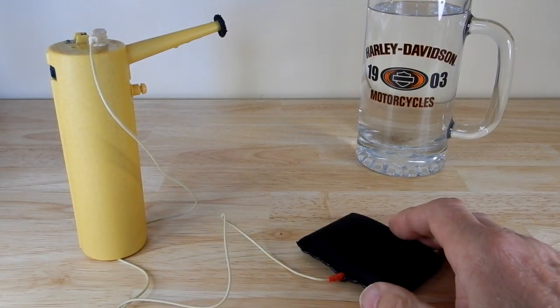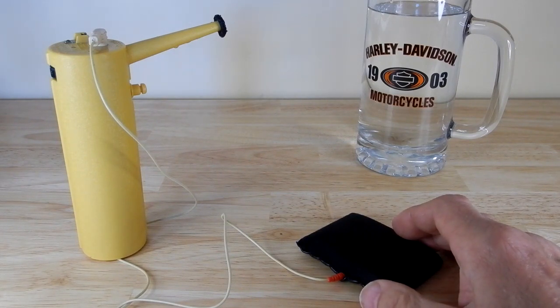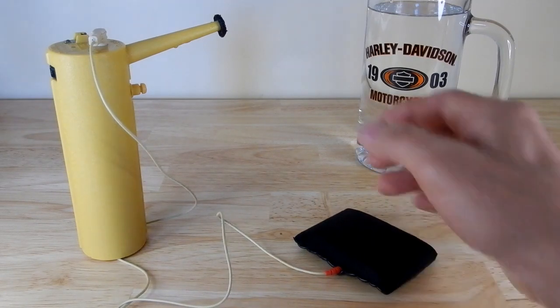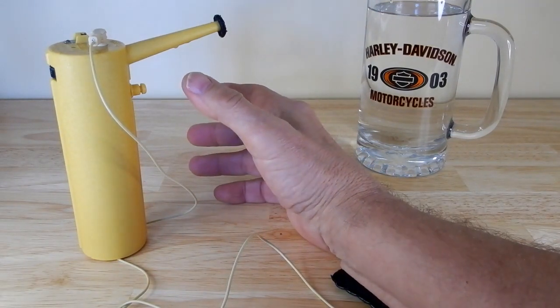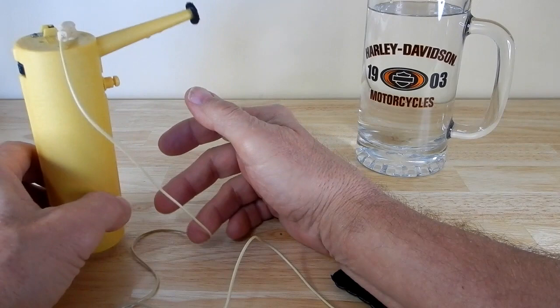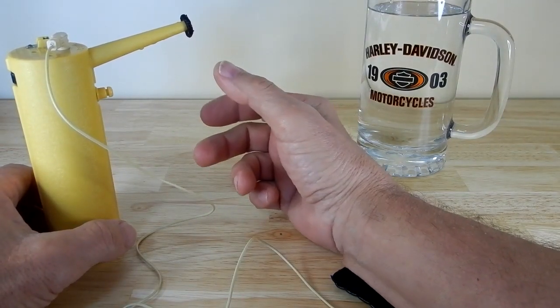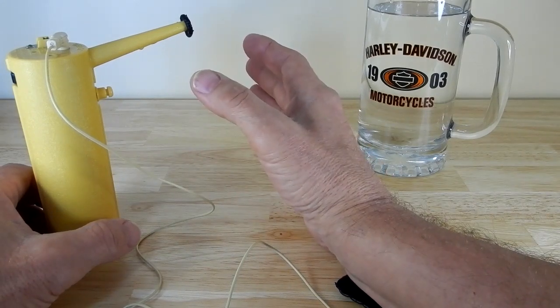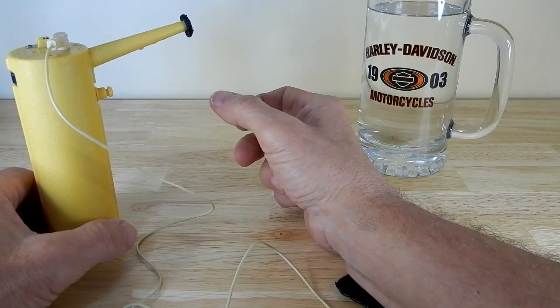You want the pad on the same side of the extremity that you're working with. When I was doing the left side of my face, I just put it underneath my left arm. Then you go on your soaked pad like this. I also want to state that I am not a doctor, not a physical therapist, and not a professional — I'm just giving you an example of how I use this. Always follow the guidance of the physician or professional directing you to use this.